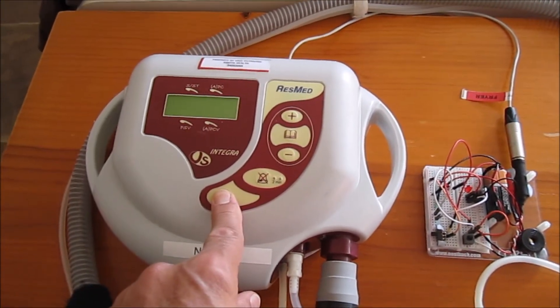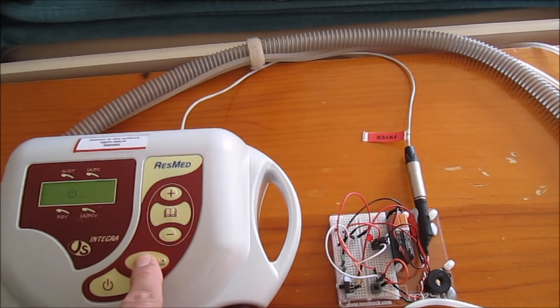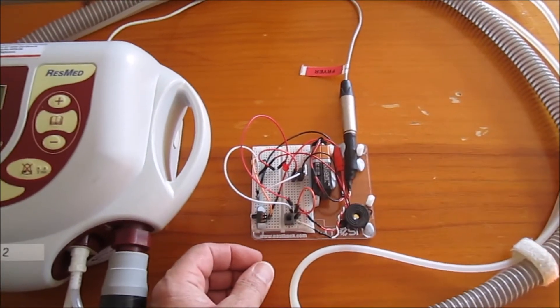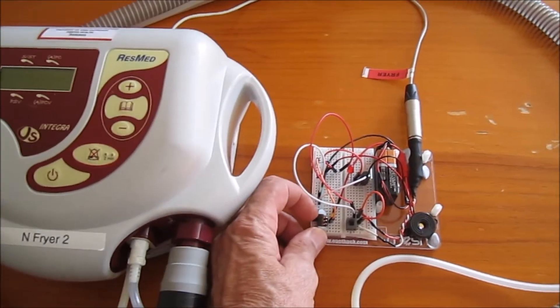Just shutting down again. Then the light is off, we're in alarm mode. The only way I can shut this off now is I've got to physically turn it off.